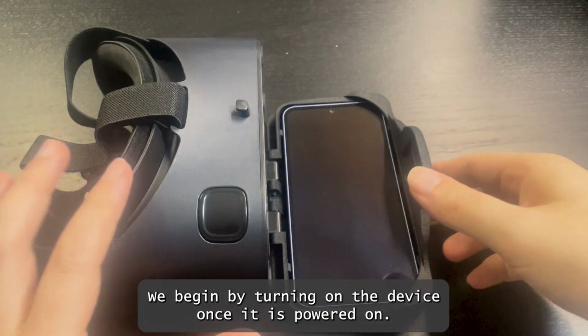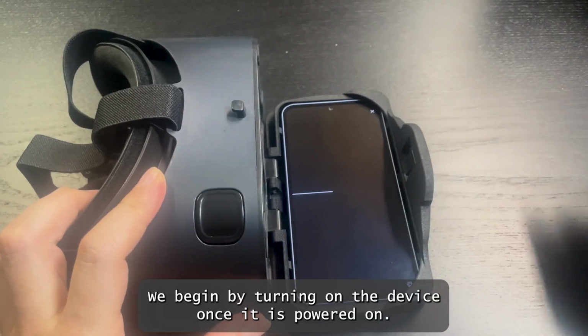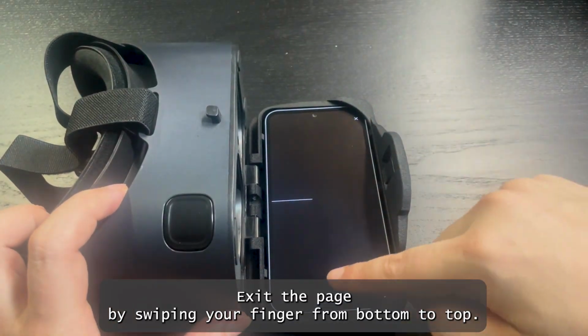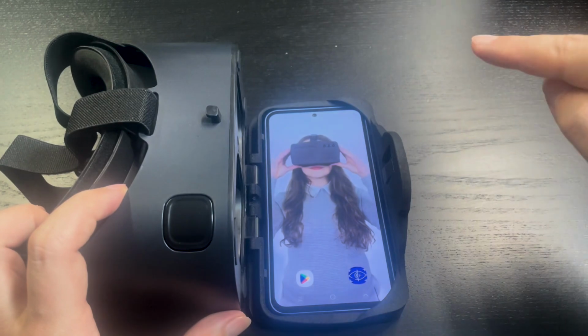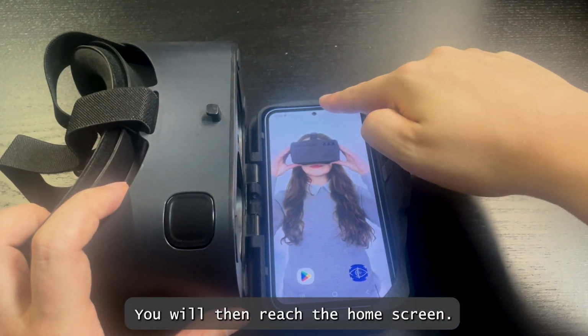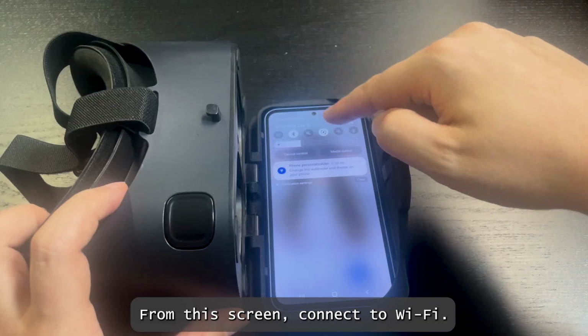We begin by turning on the device. Once it is powered on, exit the page by swiping your finger from bottom to top, then press the round button. You will then reach the home screen.